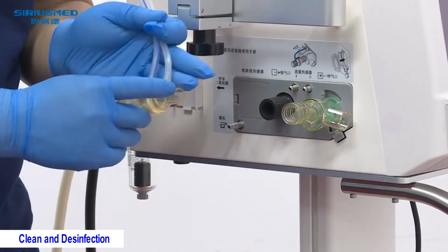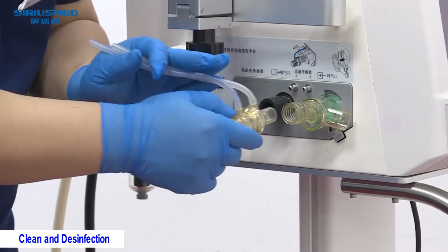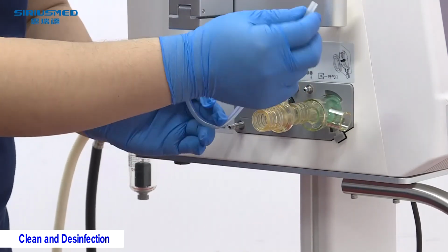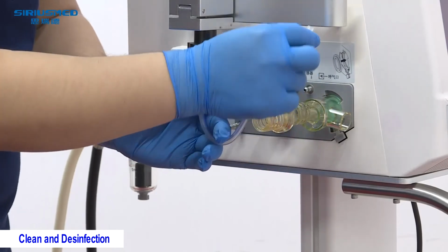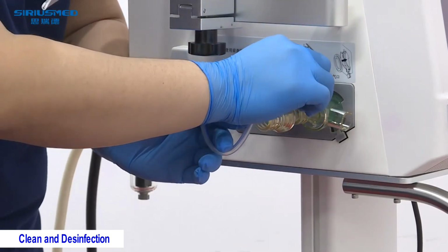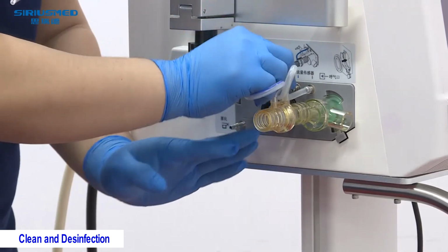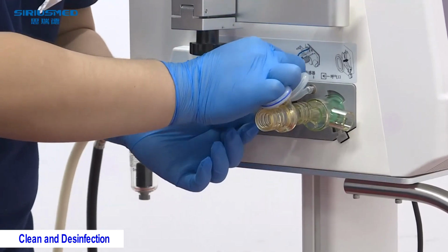And then finally, we connect this flow sensor probe. Keep this sampling tube upside and follow the instruction. The blue one connects to the blue and the white one connects to the black arrow.